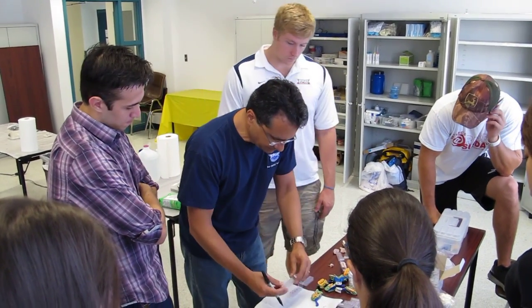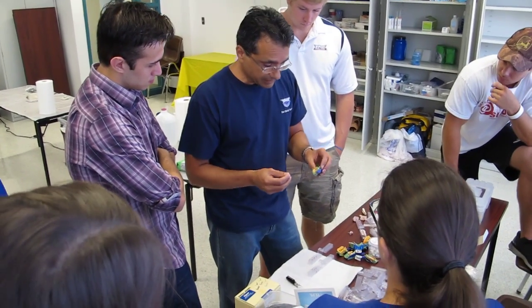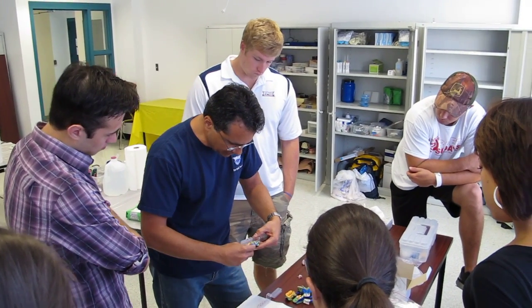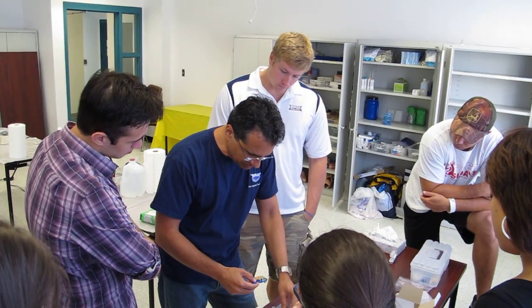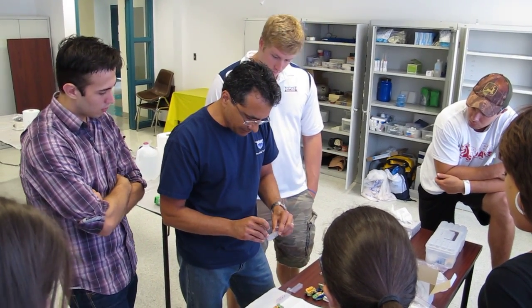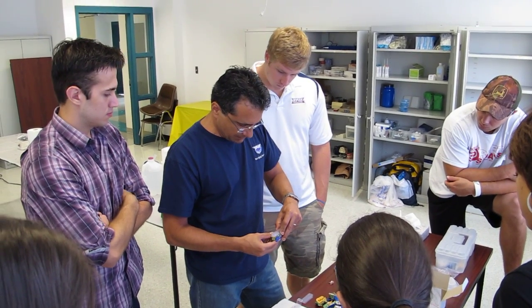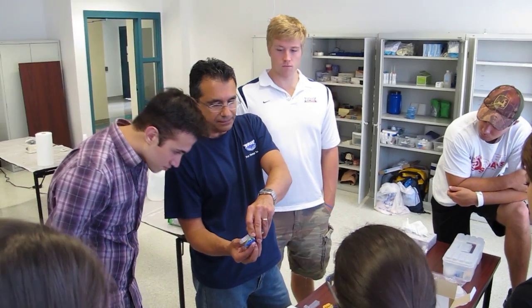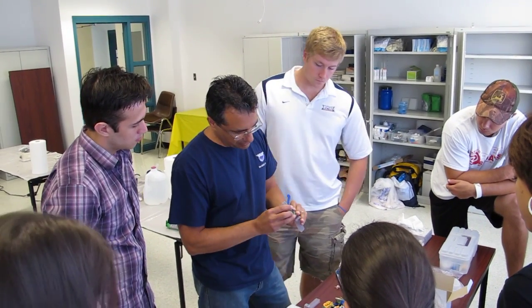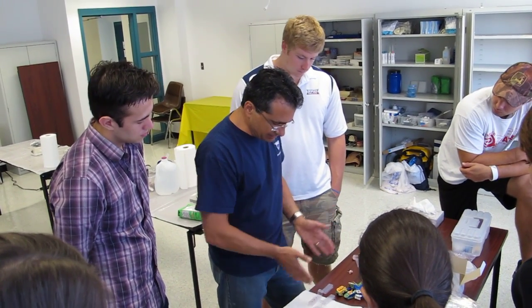For the third pin, I don't have anything anterior of my preparation, so I want to get somewhere around the two bicuspids. Look at it and decide — I want enough of the pin in there to take care of that segment. Move it down to the bicuspid region and check that it's right in the middle of the bicuspids. That works well, and it gives you more room when you're sawing out your dies so you don't run into the pin.